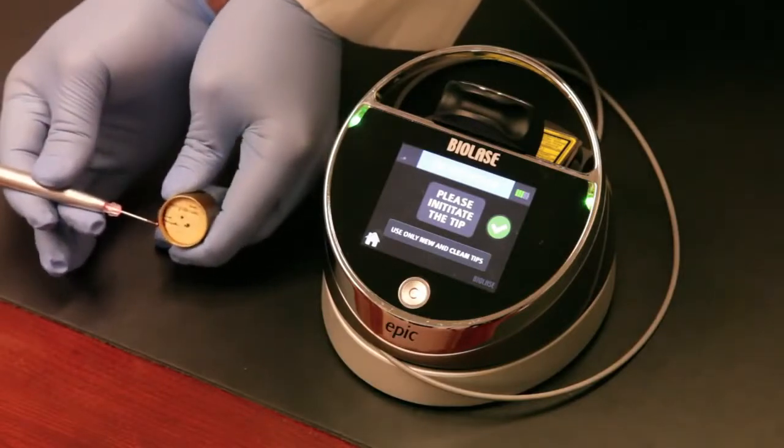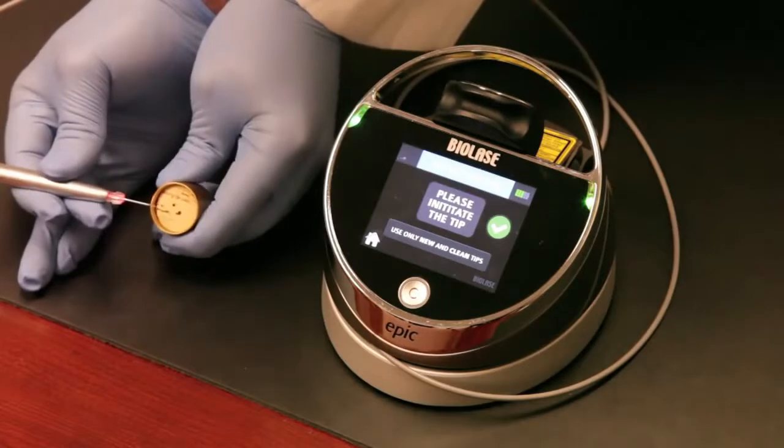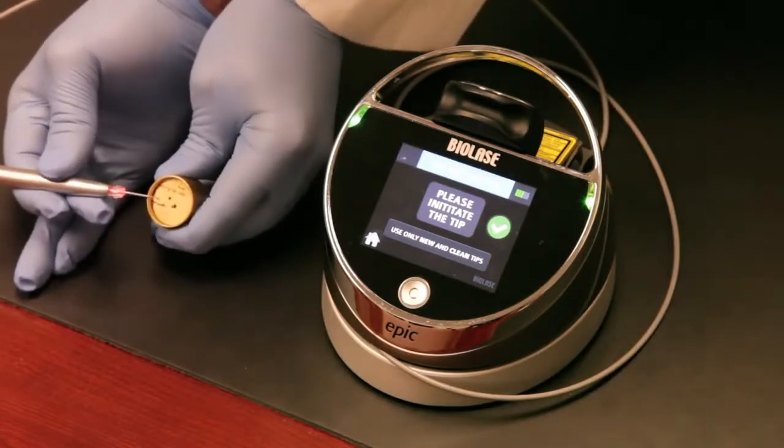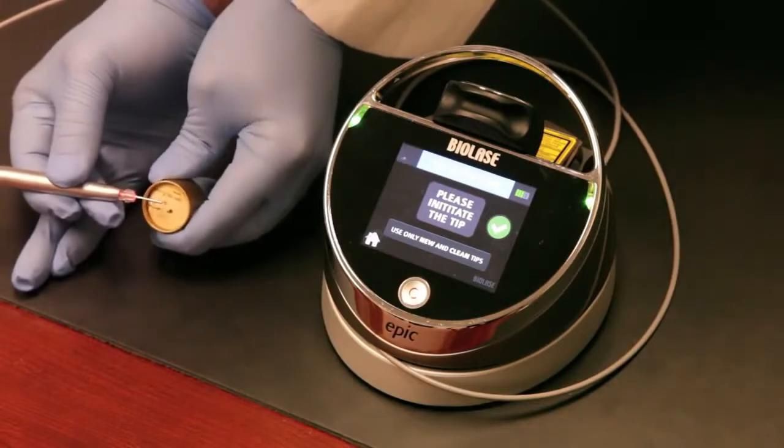You will not initiate the tip if you're using the laser for things like canker sores, aphthous ulcers, herpetic lesions. All those things require just blanching of the light.